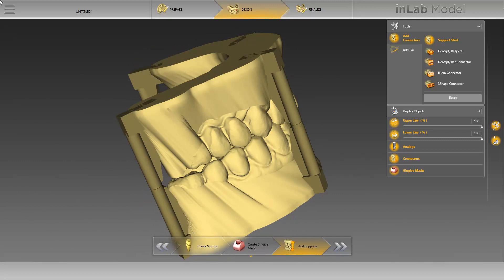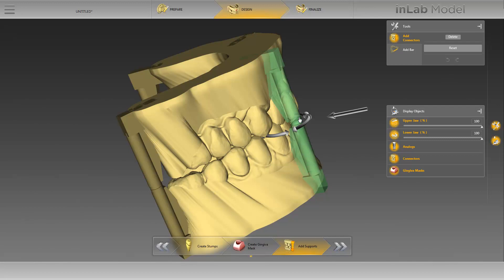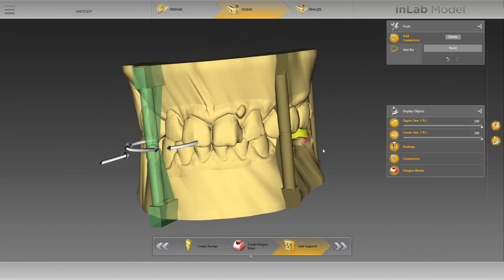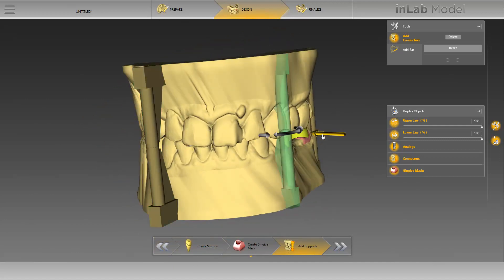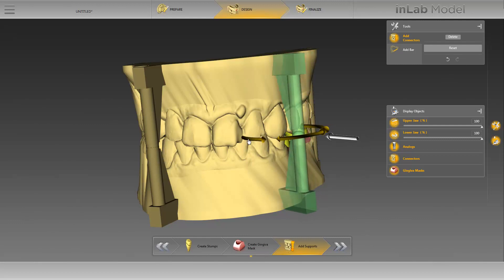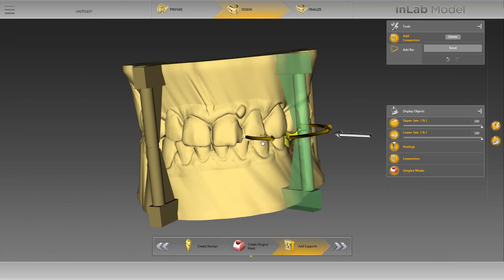By single clicking on one of the support struts, it is highlighted in green, therefore marking it as active. You can now modify it using the different directional arrows. We have completed the design phase now and move to the last phase, the finalize phase.